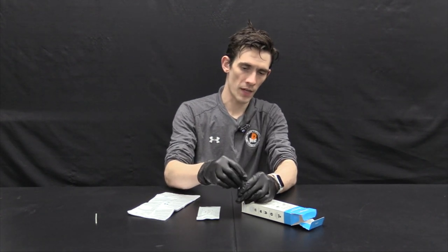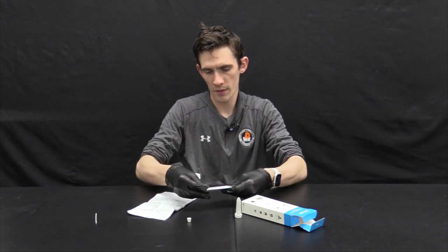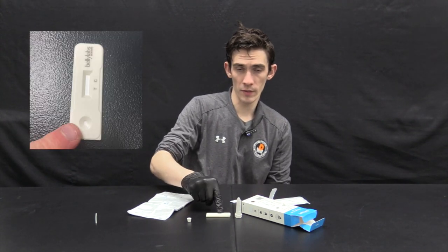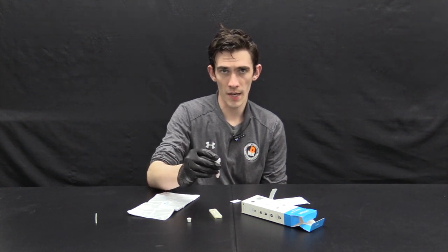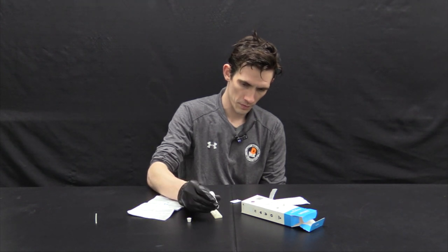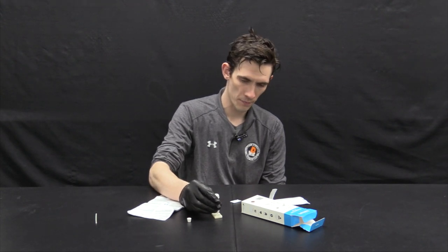After one minute, flip it upside down and remove the smaller top. Next, take out the test unit itself and place it flat on the table. Notice here's the sample well and this is the test window in the middle. Now with our buffer mixed with the blood, turn it back with the large cap facing up and drip the mixture into the sample well — you should have two to four drops. Make sure you get at least two to three drops, otherwise it won't wick all the way through and won't complete your result.